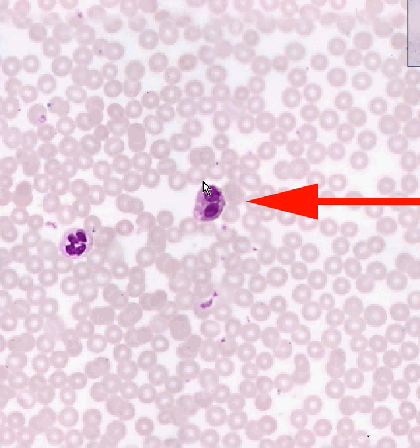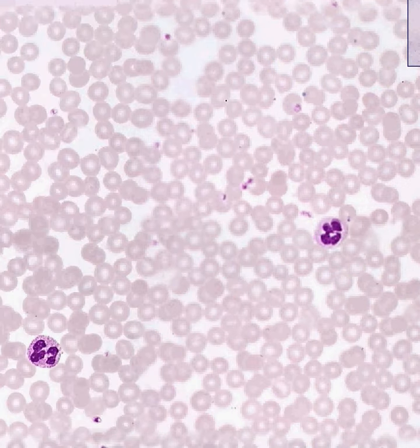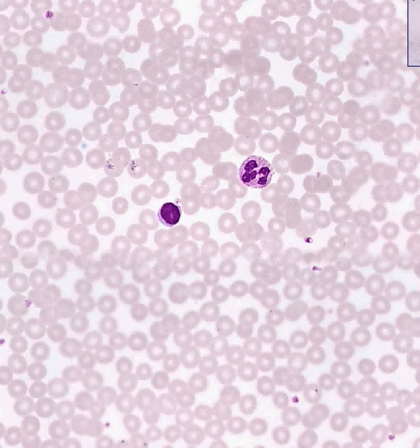So I think we covered it all. We covered the red cells. We covered the platelets. We covered the neutrophils. We covered the eosinophils. We covered the lymphocytes. I think we had a nice monocyte and a basophil as well. And once again, on the basis of the few things we looked at here repeatedly, I don't think there is anything on this slide that you cannot identify if somebody asked you to identify.